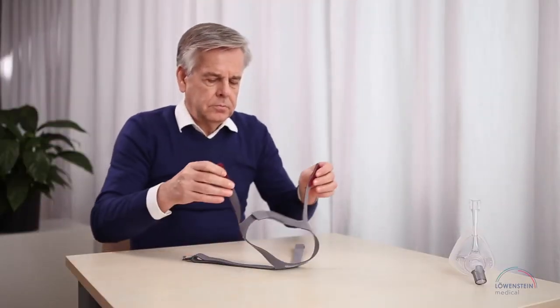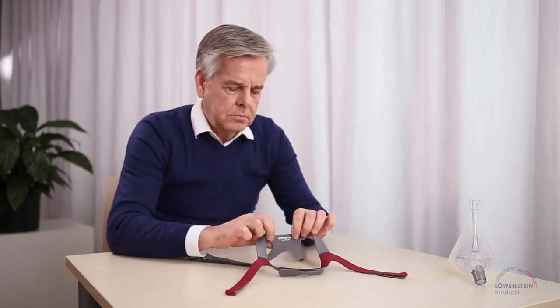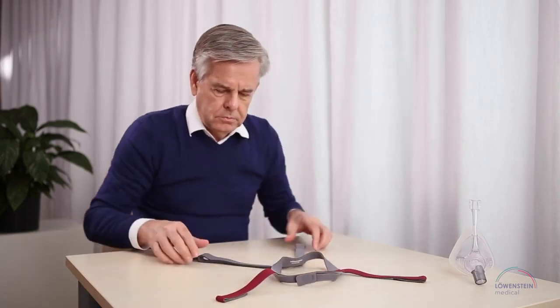The headgear should fit perfectly. To simplify assembly for you, the upper inner area is marked. The company name is in the middle on the outside and the clips are underneath.